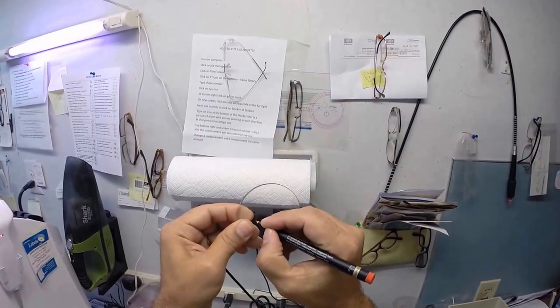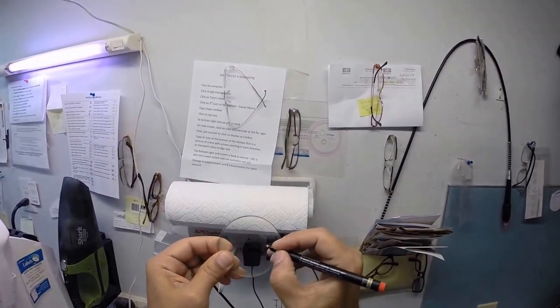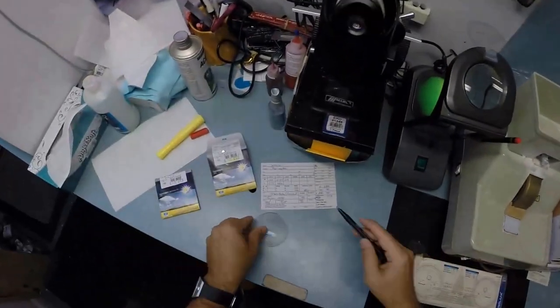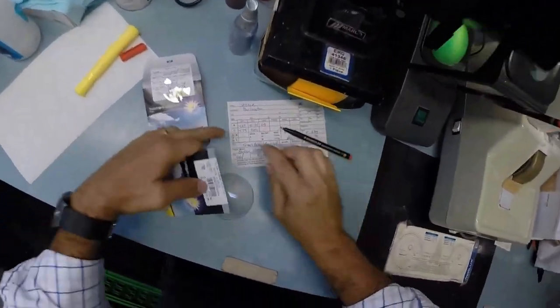I'm going to put three dots on your lenses, which are hard for you to see. They're even harder for me to see. Let me grab my pen. I'm going to put some dots on there so I can follow that. This is the right lens, so put an R on there.